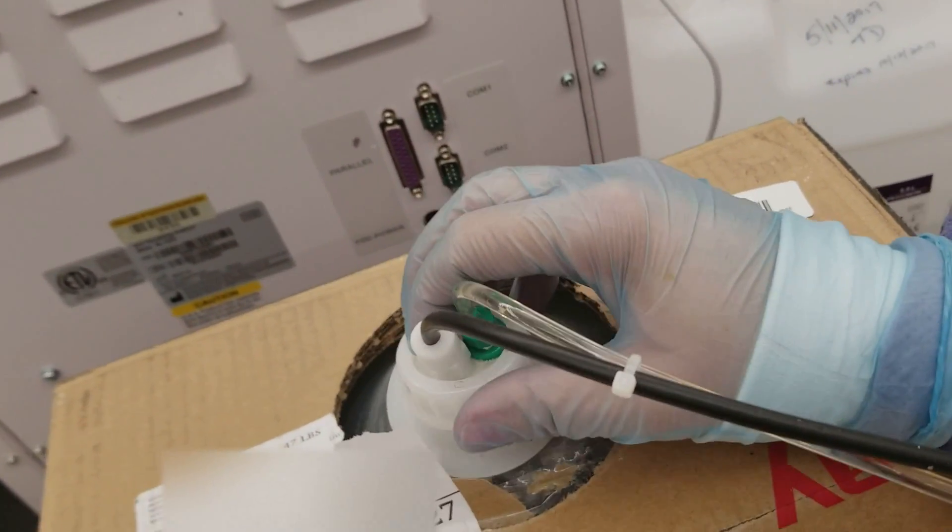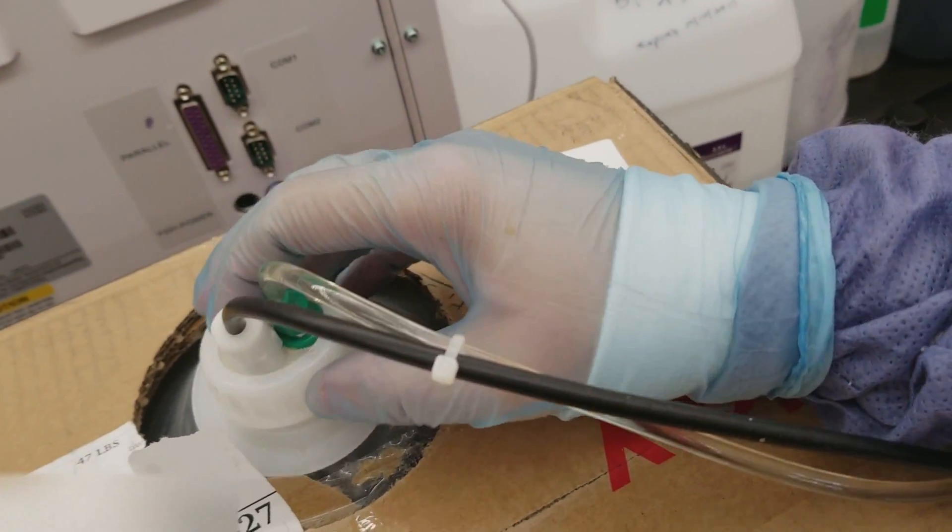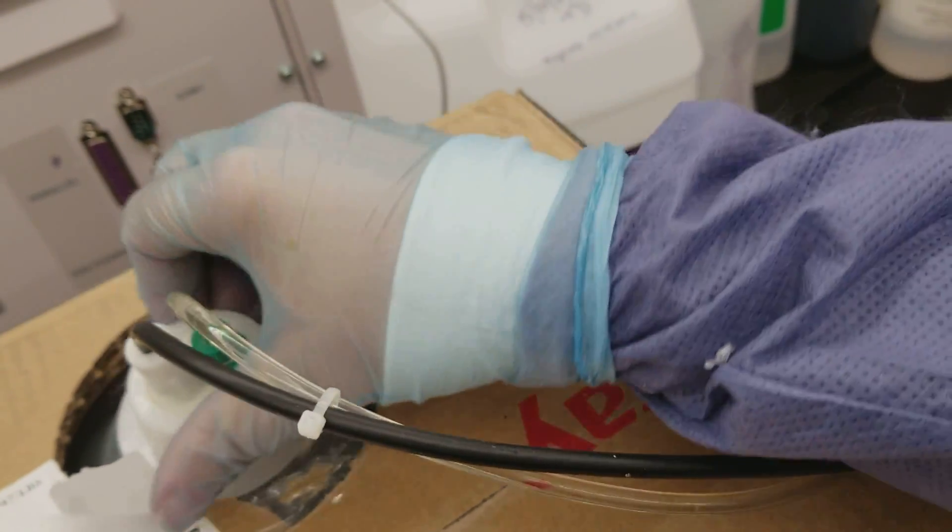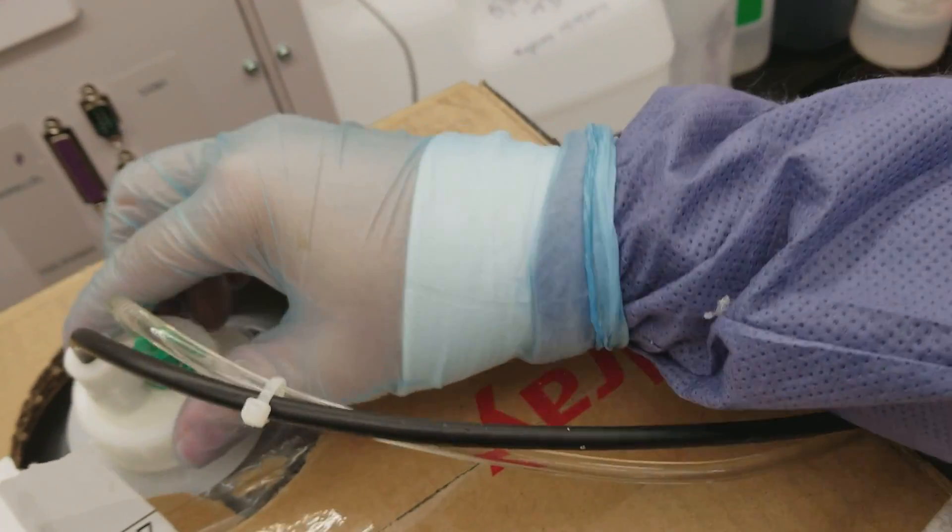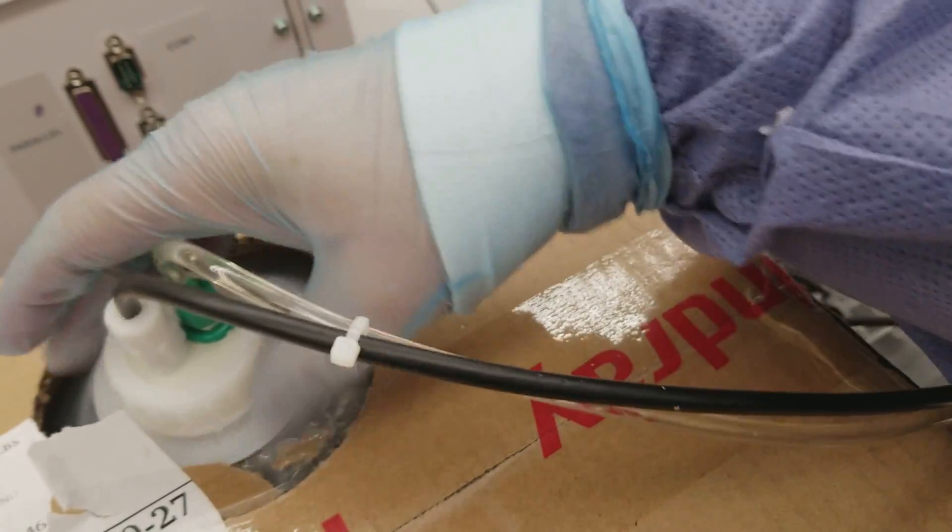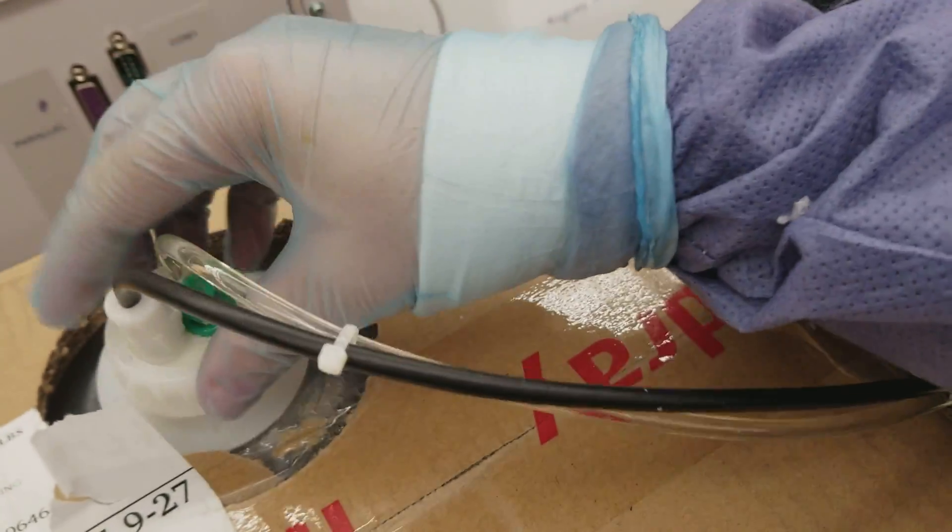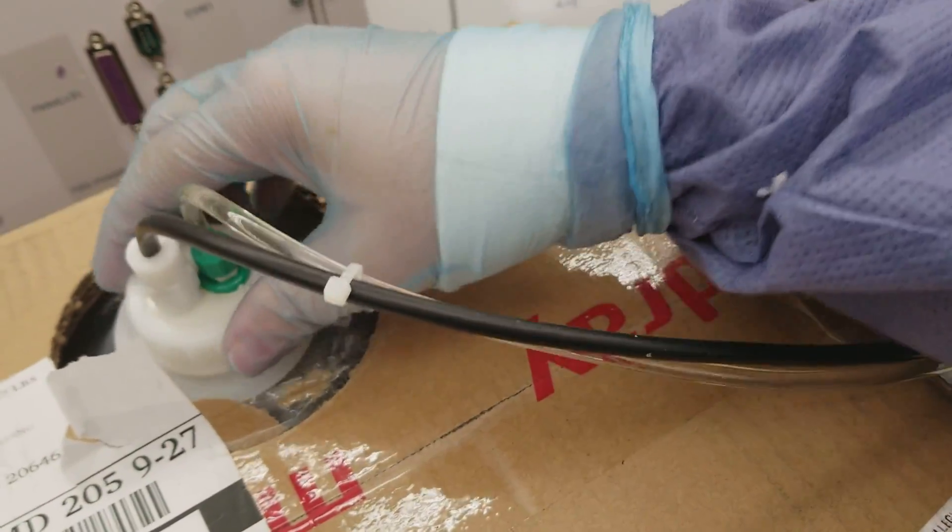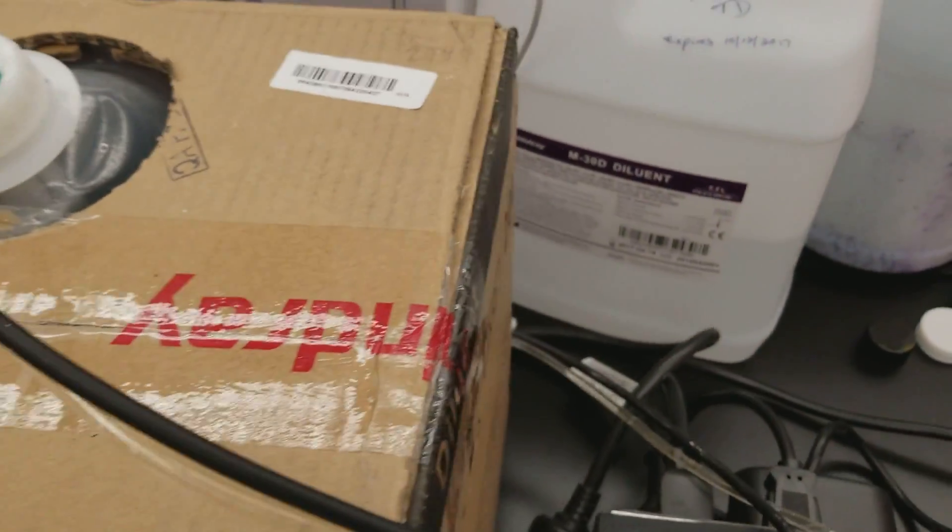When you put this back on, you want to make sure to lift these here and screw on the top, because it doesn't seal very well unless you lift up this piece. And this is very hard to do one-handed because I'm trying to hold my camera.